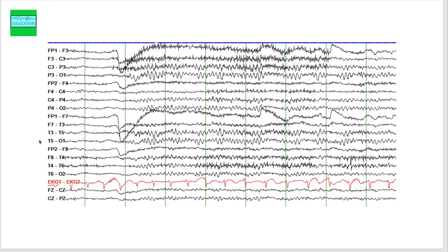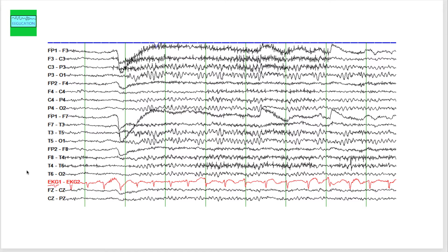Have a quick look at this EEG and see if you're able to pick it up. I'm not talking about the EEG today. I'm talking about a certain artifact that you can see. Let's see if you're able to identify it. Pause the video here and see if you can identify it. If not, let's get to it.